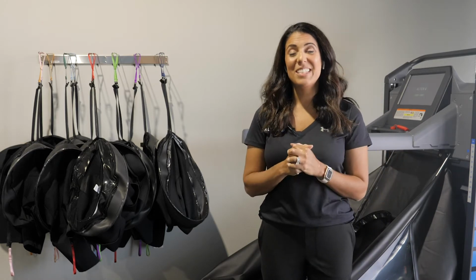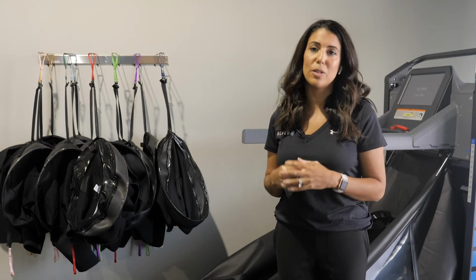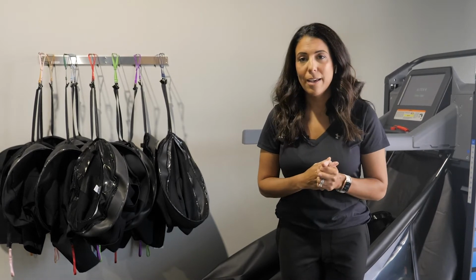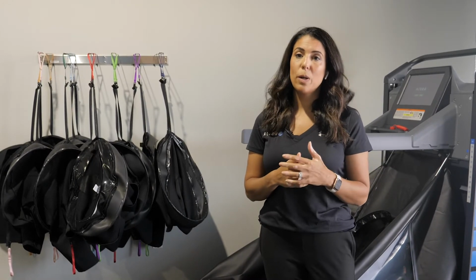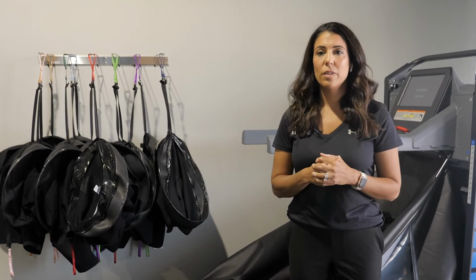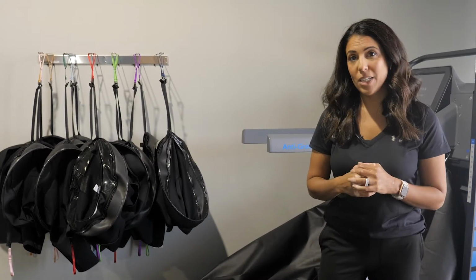Again, we can go really deep into all these applications, but for today I just wanted to expand your mind into thinking of all the different uses that the treadmill can be used for, a variety of clinics, a variety of settings, and a variety of applications. We do have a ton of case studies and videos and webinars on our website under the clinical section that can really start to give you a little bit more detail into how these patient populations can benefit from the technology. So let's start getting on the machine.